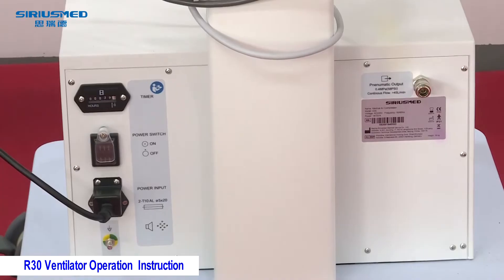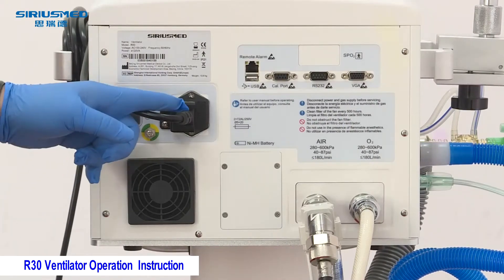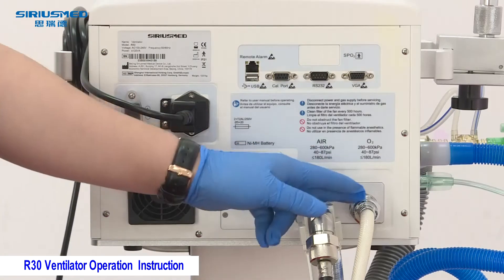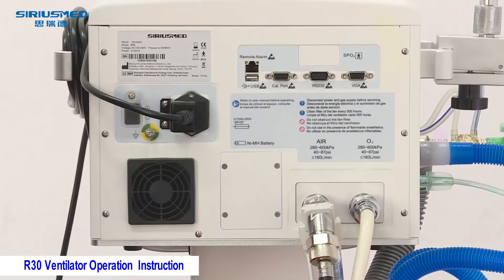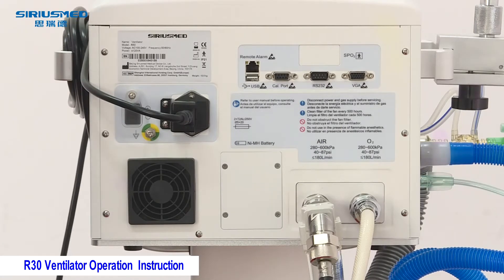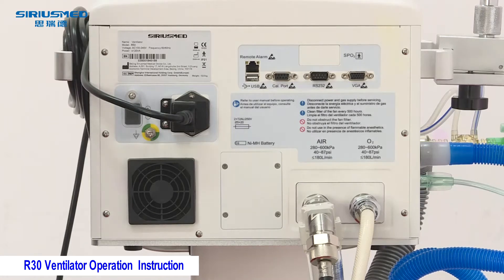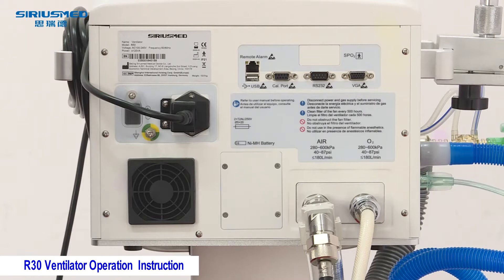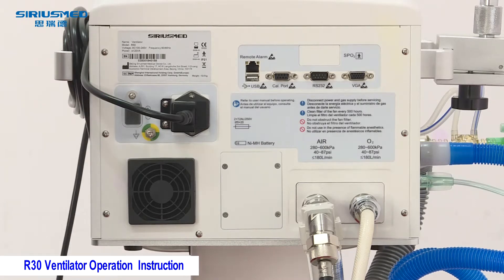The ventilator has fans, battery, and gas supply for air and oxygen. The pressure for the gas supply is between 280 to 600 kPa, but for safety consideration we suggest the gas supply pressure be between 350 to 500 kPa.